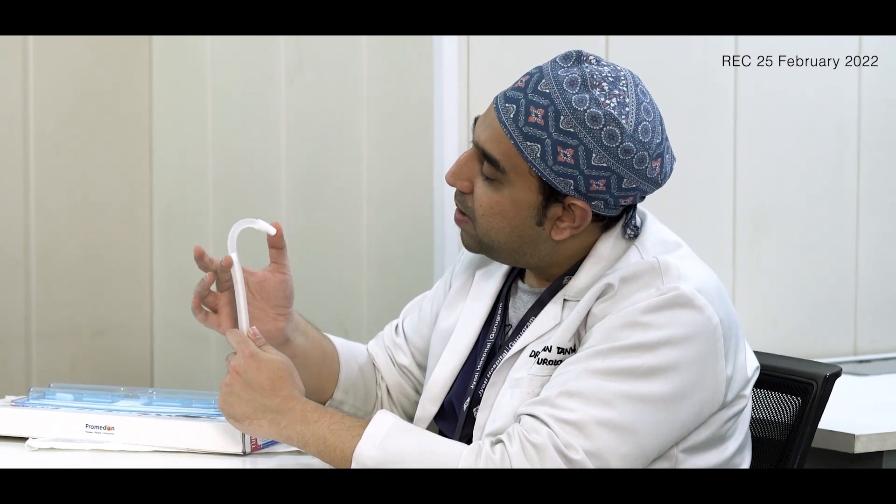I was a little worried when I first met you that the proximal part is a little too flabby, so I thought maybe if we put it in and it keeps wavering, patients might complain that the implant is a little mobile. But I think that has been handled well by the matte finish of the outer layer. It's not hydrophilic — I would really appreciate if it were — but even if it's not, the problem I sometimes face with malleable implants is that if they are too glossy and don't hold well to the tissue, they would just roll over while the patient is trying to bend.